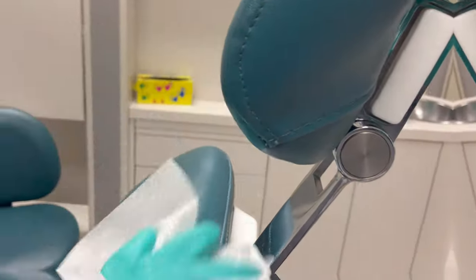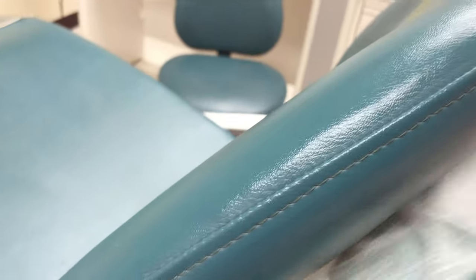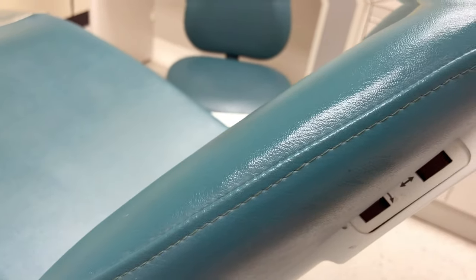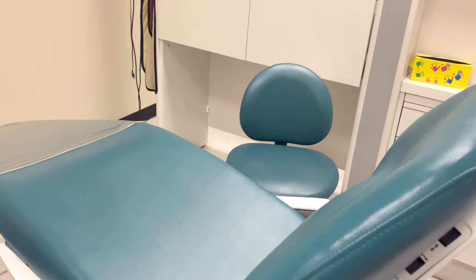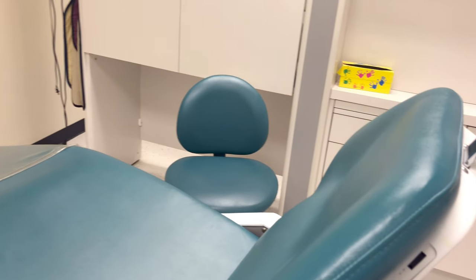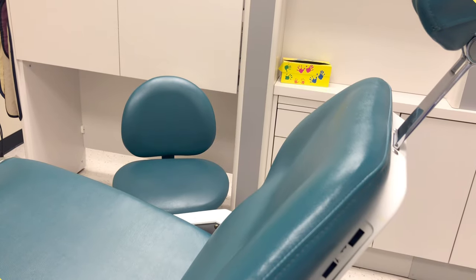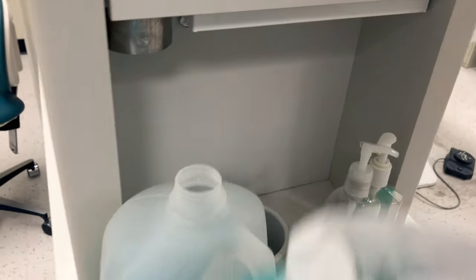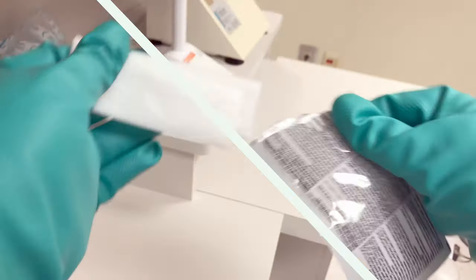Disinfect the patient chair as well as the control buttons on the side of the chair. Continue to go through and wipe down all surfaces — all clinical contact surfaces.